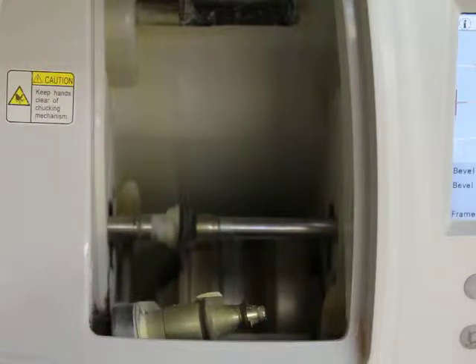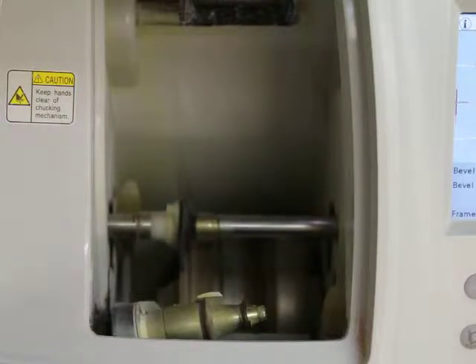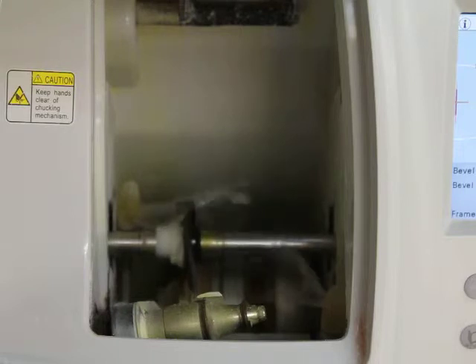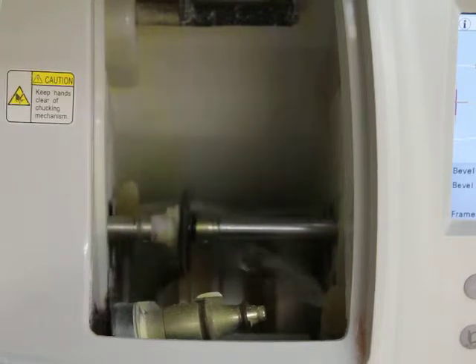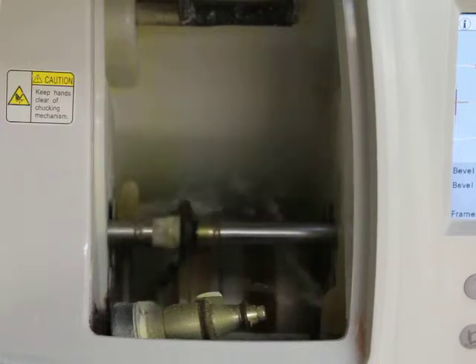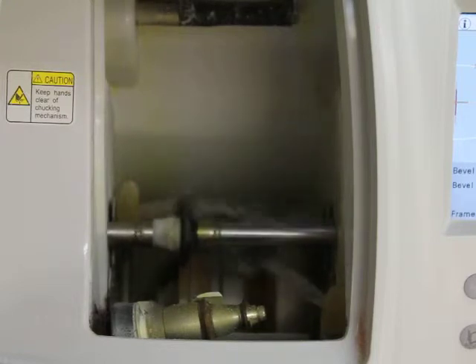Let's go. A little bit of water to give it a nice final finish, and look at that lens — the apex of the bevel to the front — that will give it a nice finish.